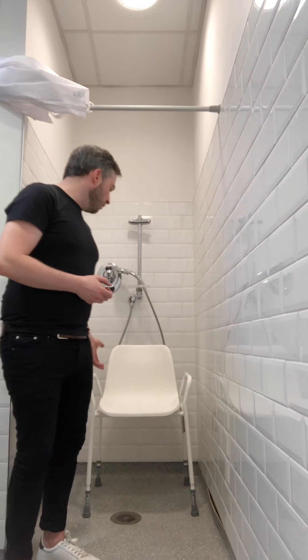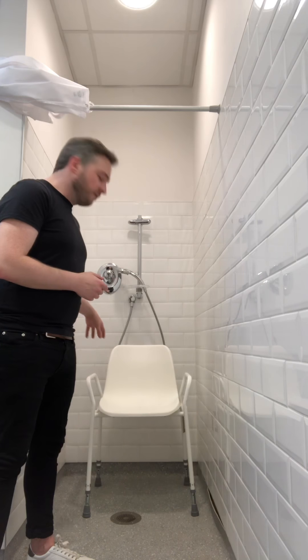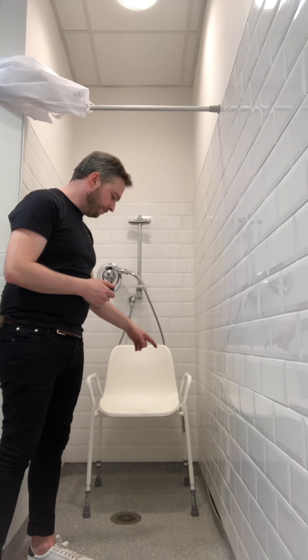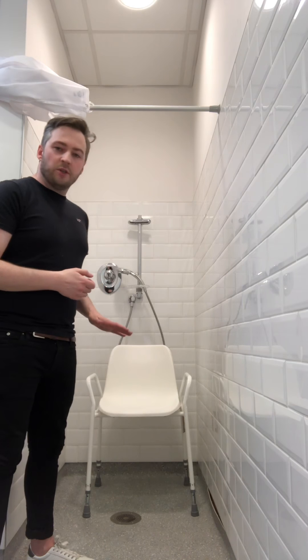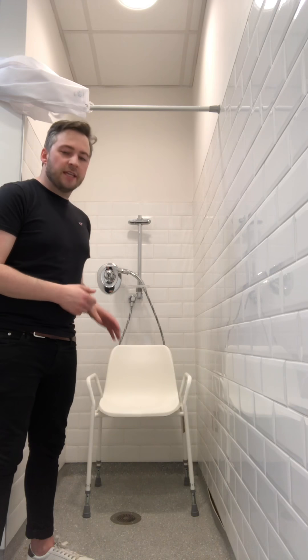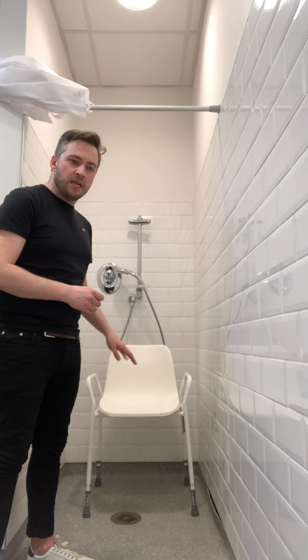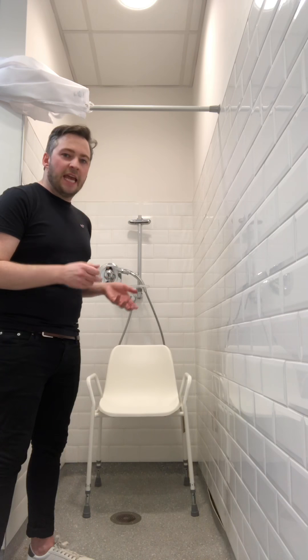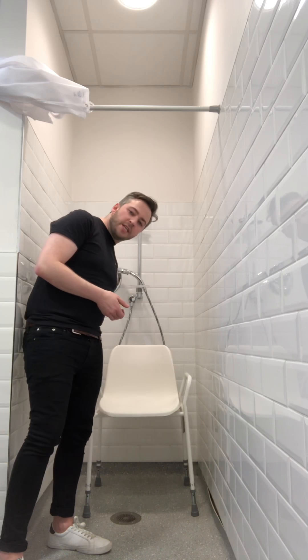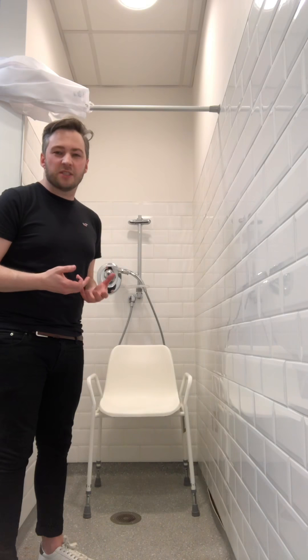First I'm going to talk about the shower chair. This chair has four legs, a seat back, a seat base, and two arms. It's important to know before you put the shower chair into your shower that your shower has a level floor — the tray is level and not uneven. If it's uneven, you might find that when you sit on it or transfer on it the chair can move, and this can be dangerous and might cause an accident.